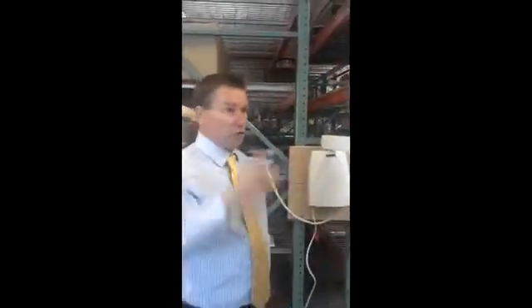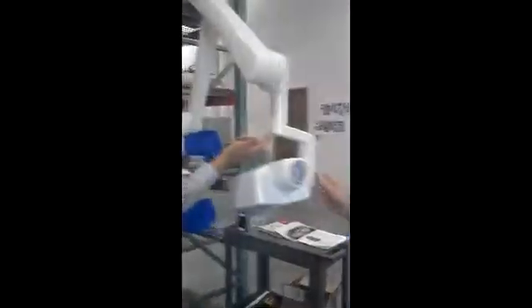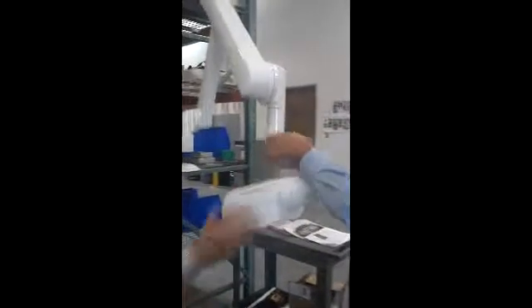We thought about everything when we designed this unit. It uses a mechanical spring — not a pneumatic cylinder. If the arm is drifting, you just tighten the spring. To adjust, you pop off the cover, which has three screw holes, and put a two-and-a-half Allen key in. Every joint has a tightening adjustment point.